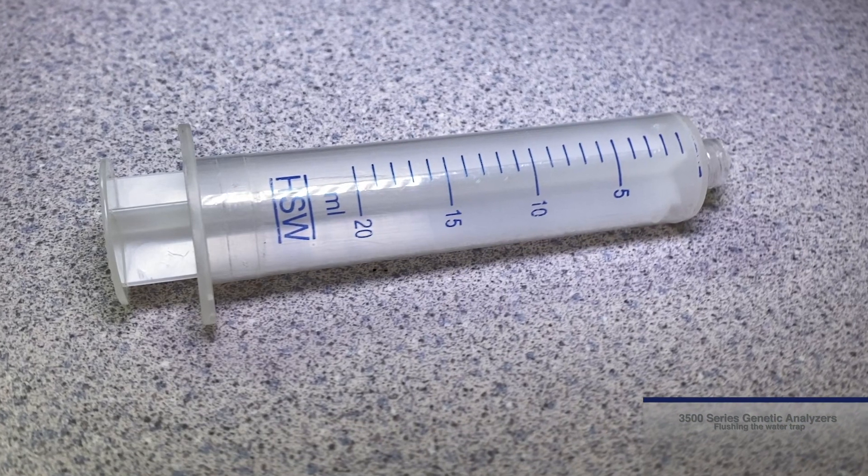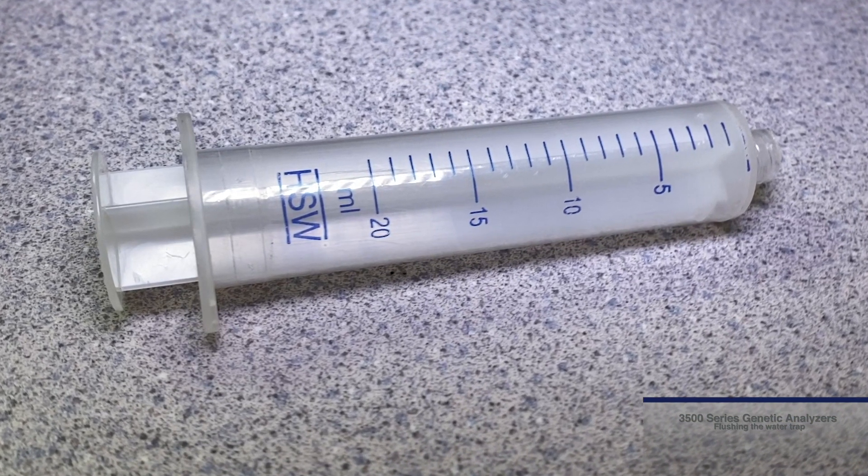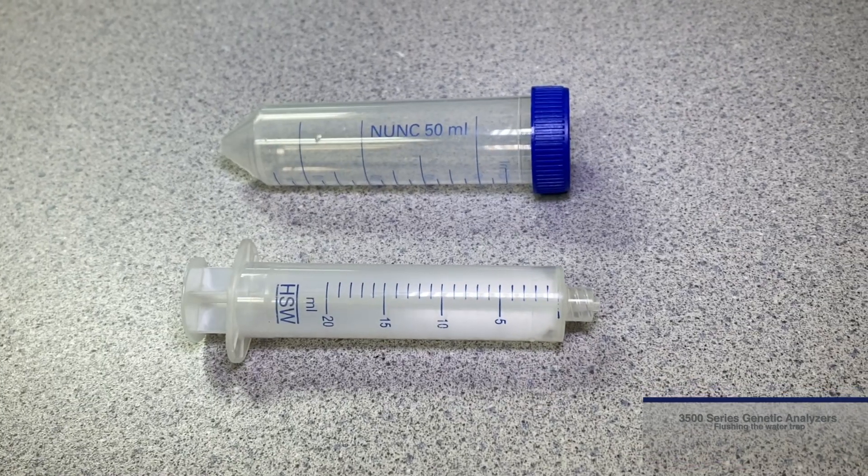To flush the water trap, you will need the 20 milliliter LuerLock syringe provided with your instrument and either distilled or deionized water.